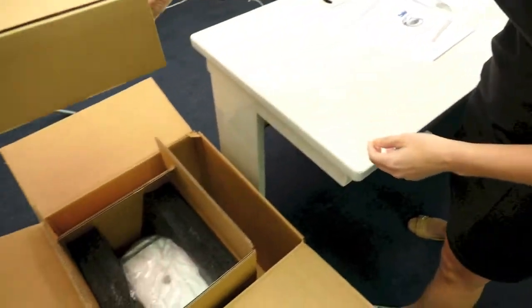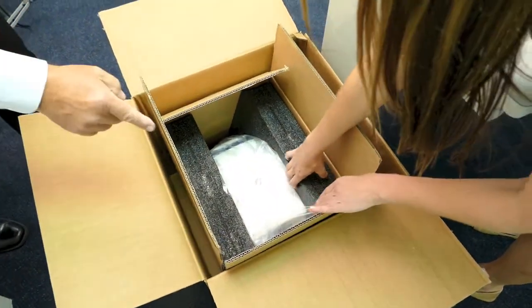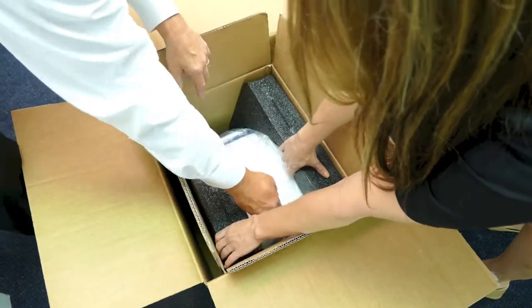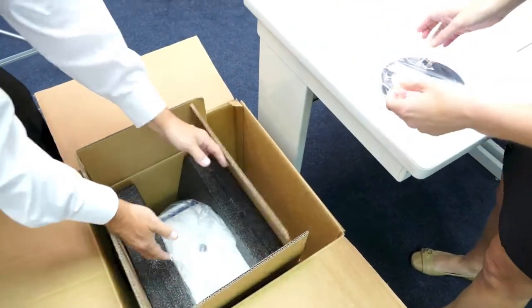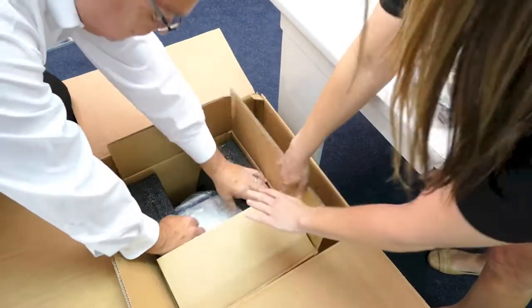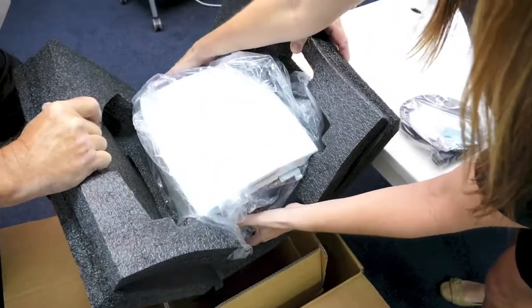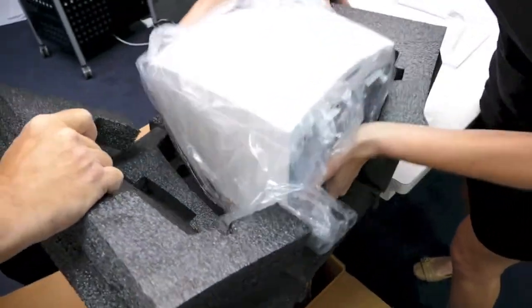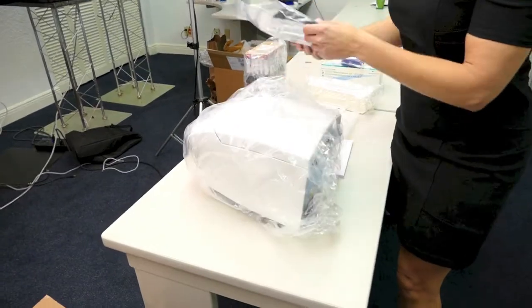And remove your centrifuge. It's a bit heavy, so having two people there. We're going to remove it. Place it down. We're going to remove the plastic.